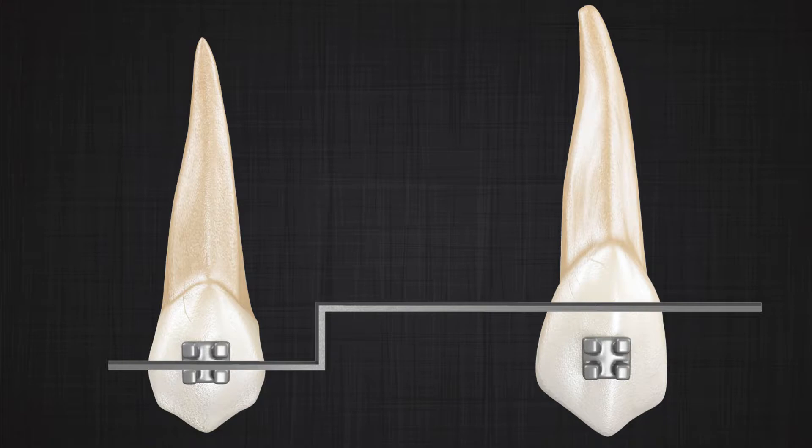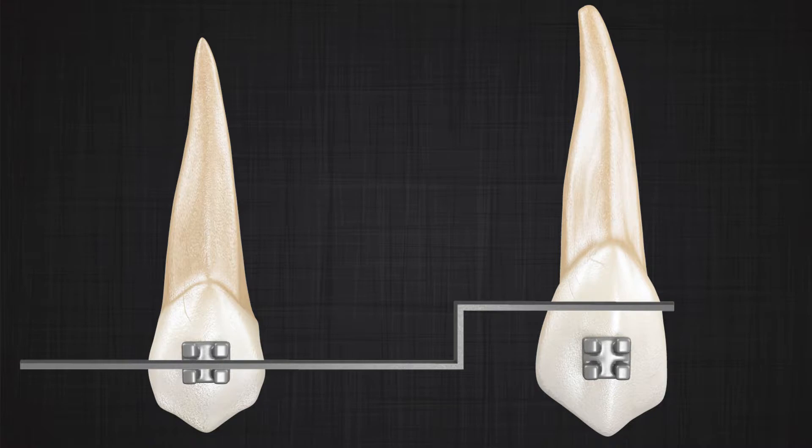the relationship between the wire and the bracket does not change, which means that it's not important where you put the step bend.